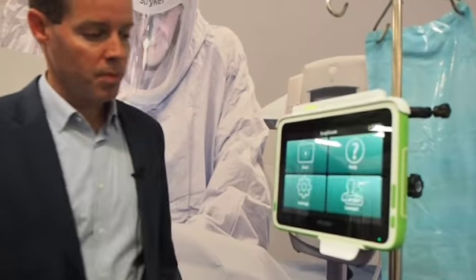What we teach is that we're not replacing the nurse's manual count — we're an augment technology to help them with the practice. After they've counted in all their sponges, they can stop scanning and the device gets kicked to the back of the room. As sponges come off the field from the patient cavity into what's referred to as the kick bucket, they'll go to the count-out screen. We signify that with a red count-out bar meaning bloody, bio-burden, used sponges — that's how they can differentiate between counting in and counting out.